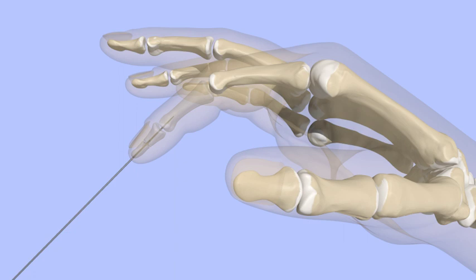The end of the wire may be cut just below the surface of the skin, or it may be bent and protected with a ball. The wire, or pin, is usually removed in the office a few weeks after surgery.